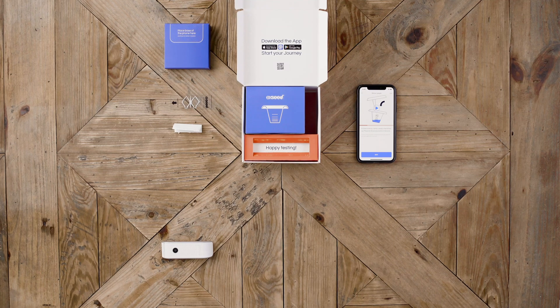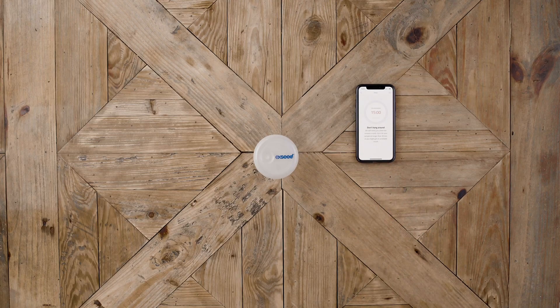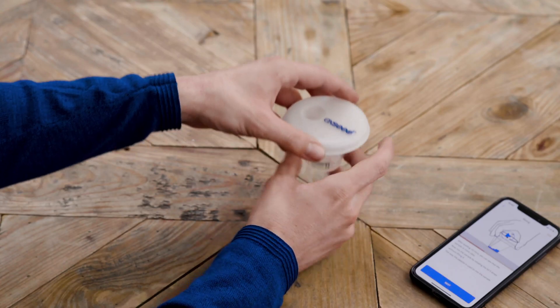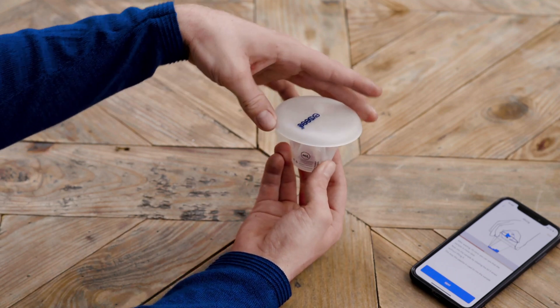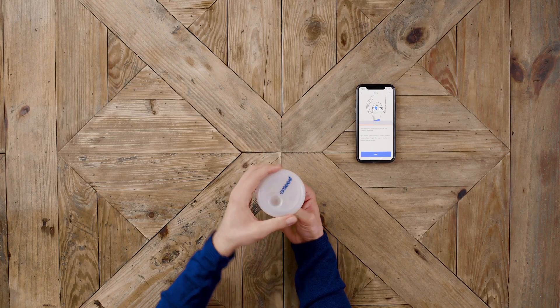Please do not use any creams or lubricants. Leave the sample for 15 minutes at normal room temperature. Press the start timer button. After waiting 15 minutes, you can see the sample is more clear now.